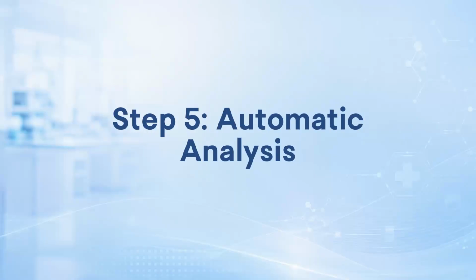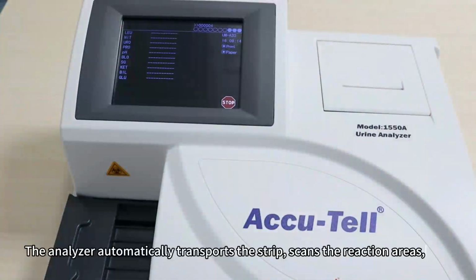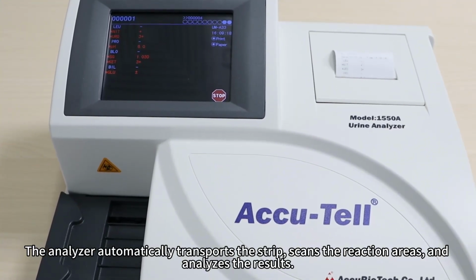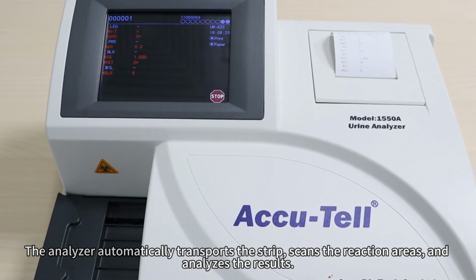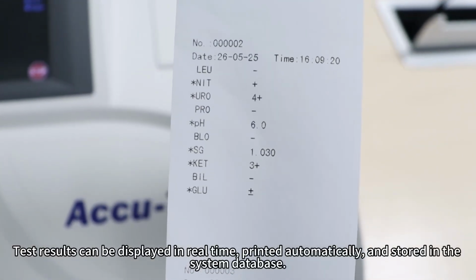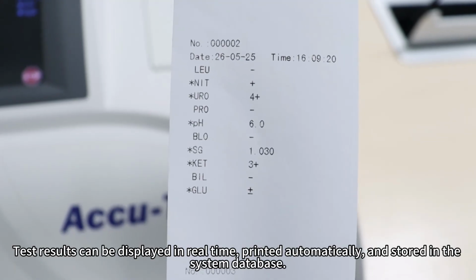Step 5. Automatic analysis. The analyzer automatically transports the strip, scans the reaction areas, and analyzes the results. Test results can be displayed in real time, printed automatically, and stored in the system database.